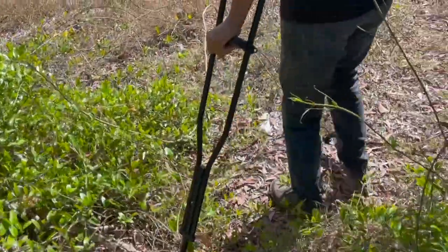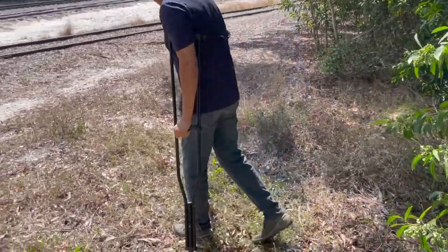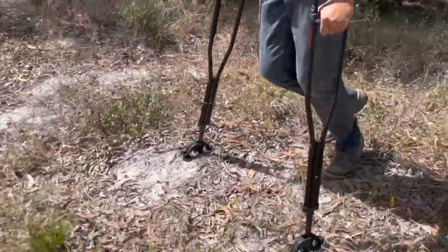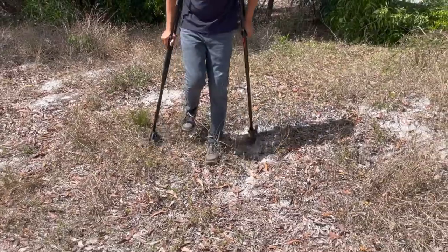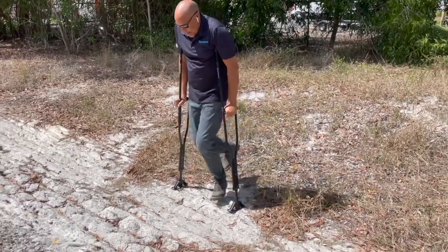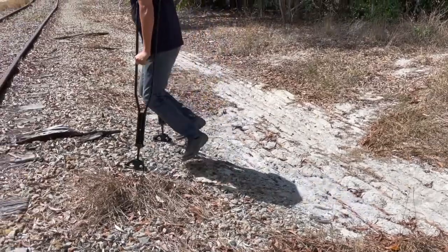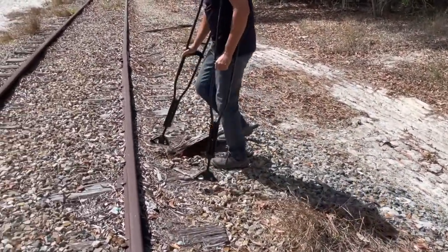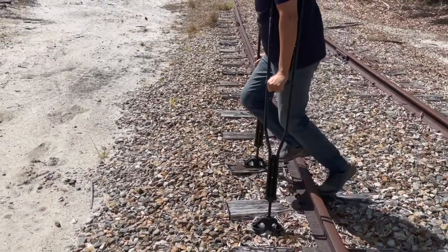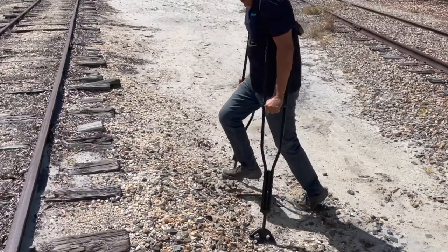Real world — the way things really happen in life. Down the hill — it's about two and a half feet down. Putting it in front for lots of stability. And uh-oh — sand, a new obstacle. Right on sand — no issue. Rocks, loose rocks. And a railroad track, going across on loose gravel. This is all simulating having a bum leg.